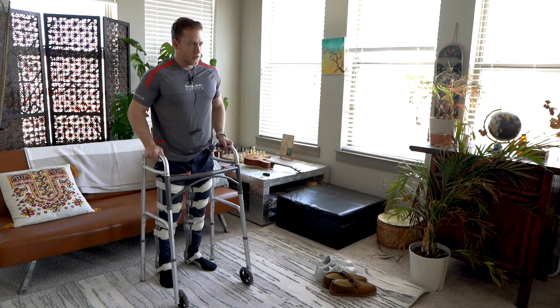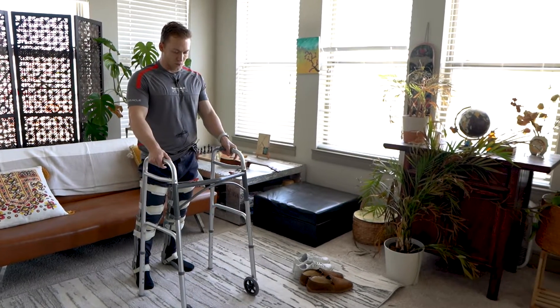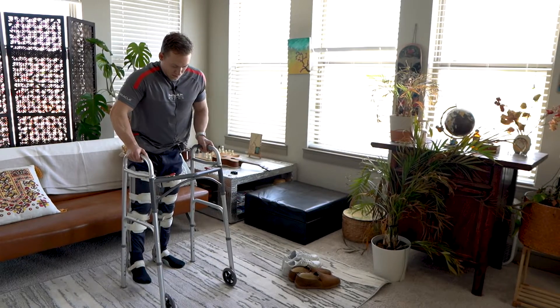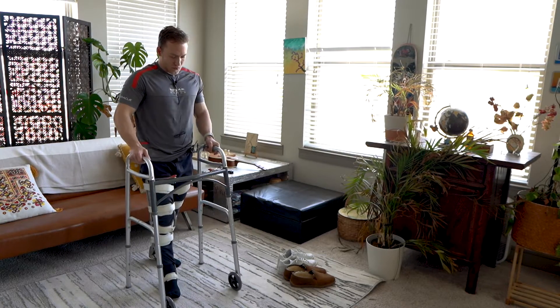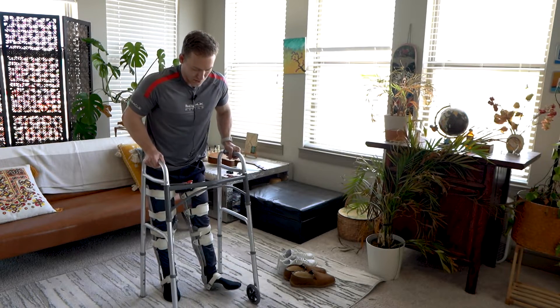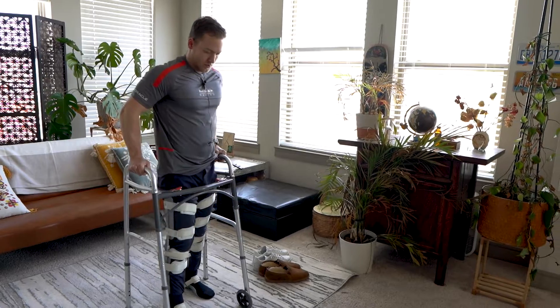Now let's get to the walking. When you're walking, I start by moving the walker forward a bit. Then I lean slightly or pull my foot up using my core, push it forward, shift my weight to that foot, pull the other foot forward, shift weight to that foot, and so on.